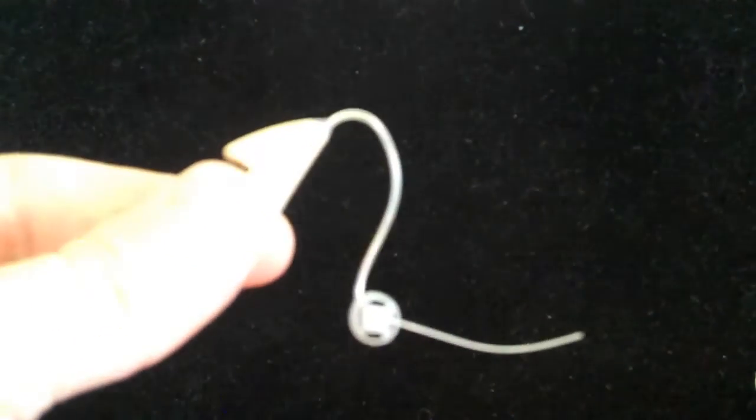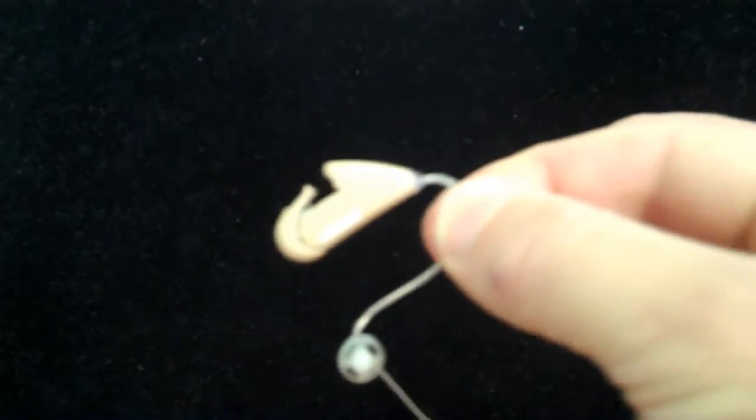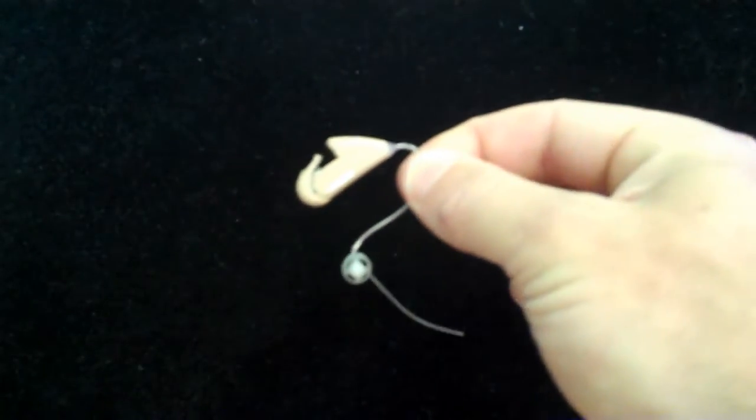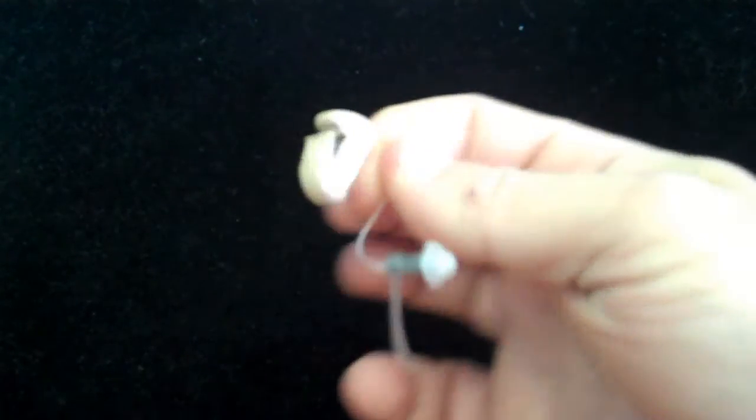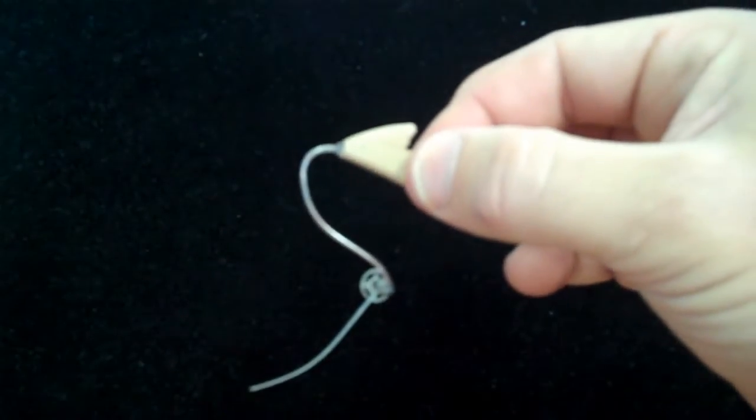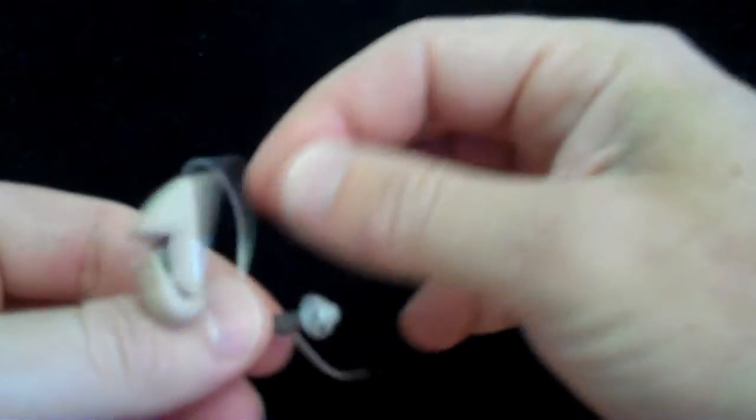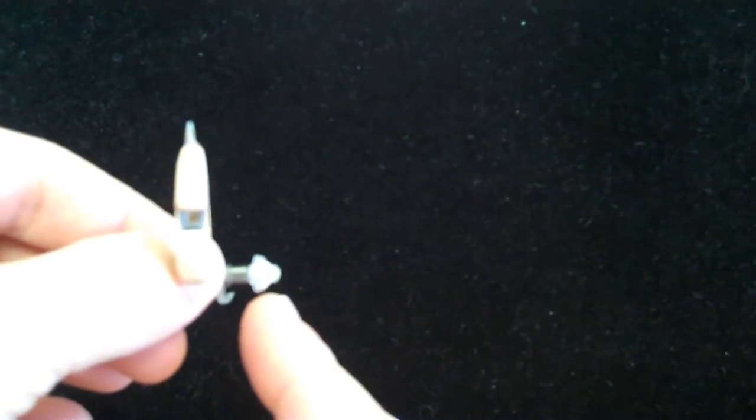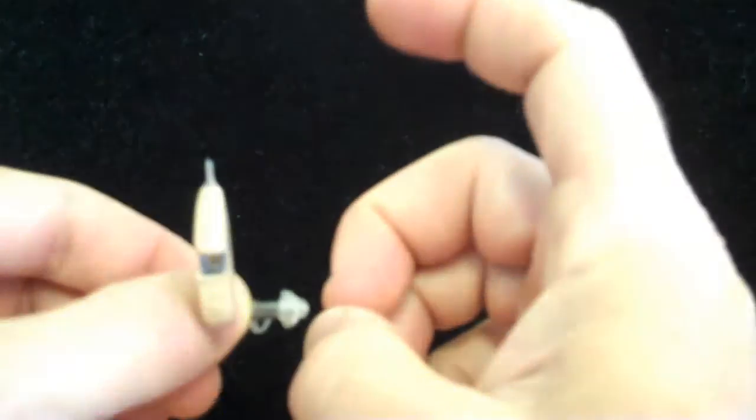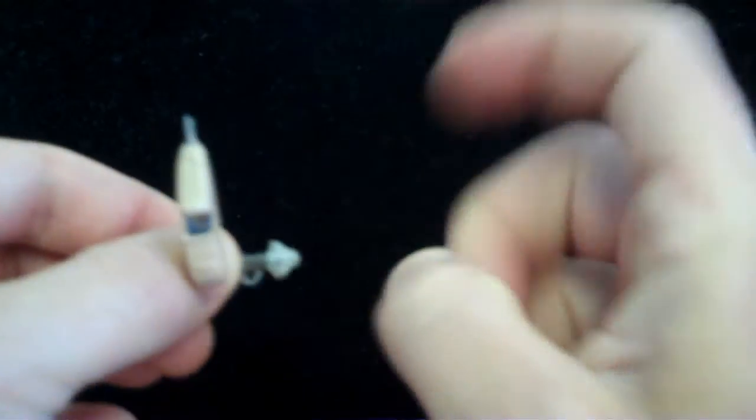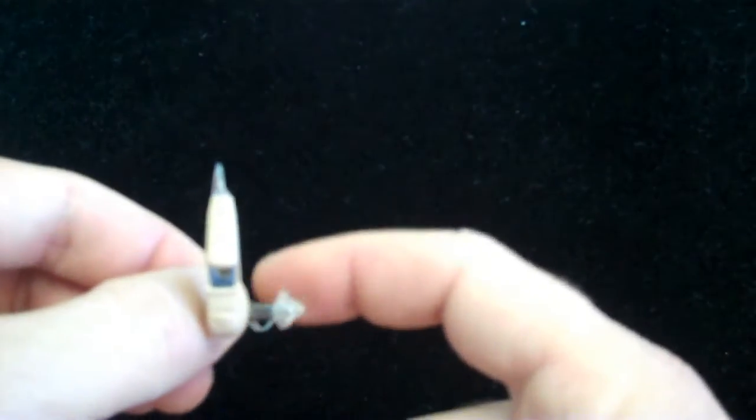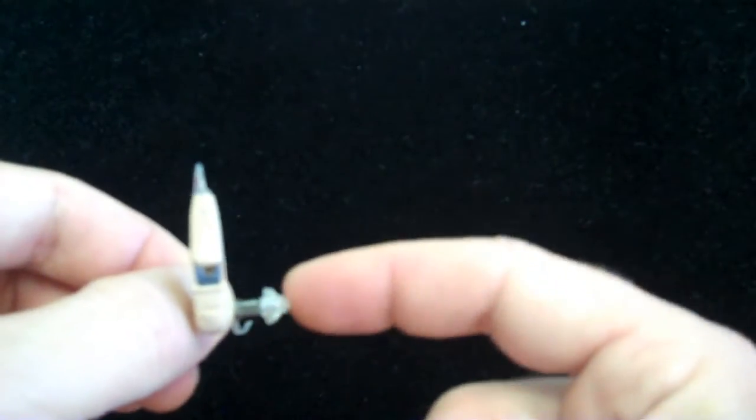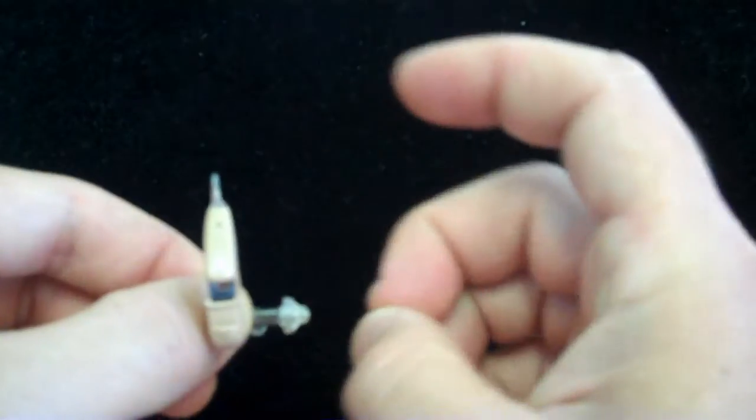The first of which, well let's talk about a receiver in the ear micro style BTE. This is a very common style of hearing aid used today. This particular one is from a Swiss hearing aid company named Phonak. The wax trap itself is contained at the end of the little receiver here. We actually have two pieces to worry about. The first is this non-custom flexible dome sitting on the end here.